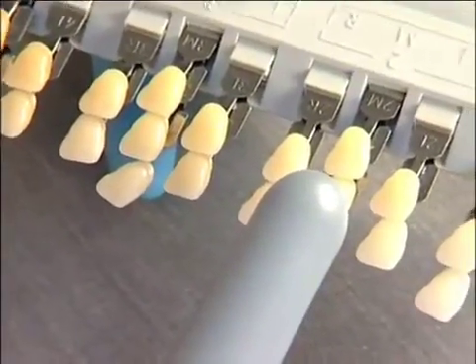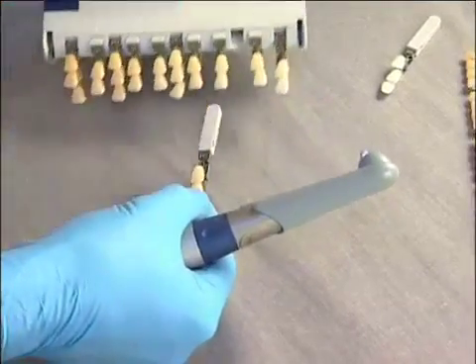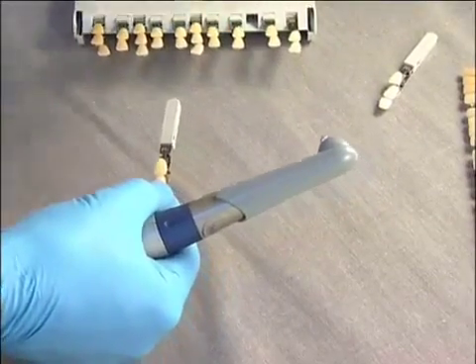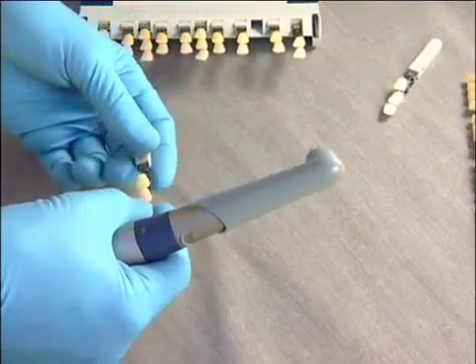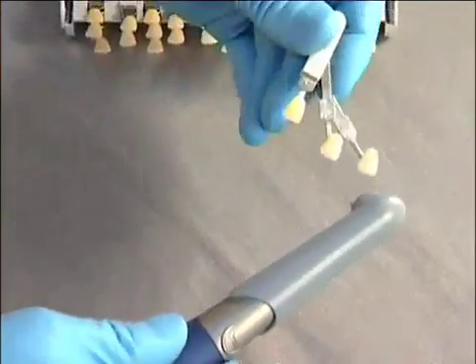We back up to a correct luminosity that seems to be this one. We then take out the intermediate group in the correct luminosity group, and we choose the color saturation level.